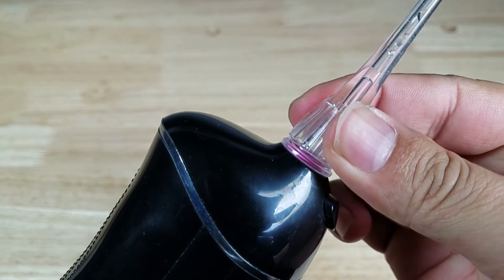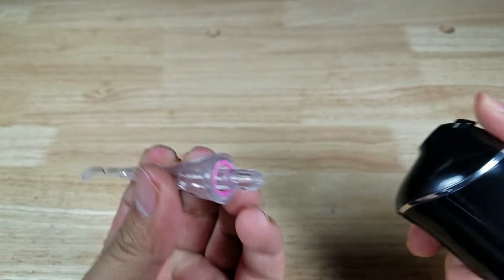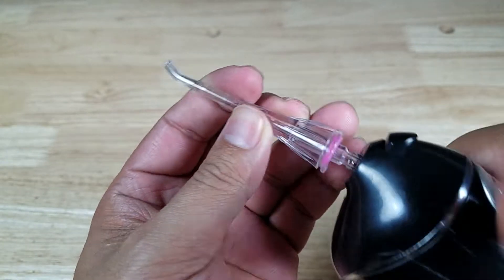That's also why it's really important that the nozzle can rotate 360 degrees. To remove it, you just press down on this button and it comes out. Always make sure that O-ring — that little pink ring — is in there. To insert it, you just press it in.